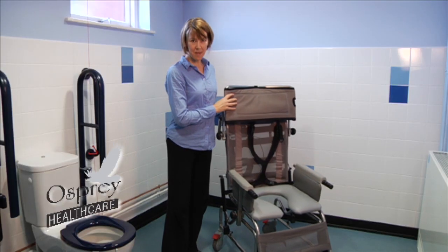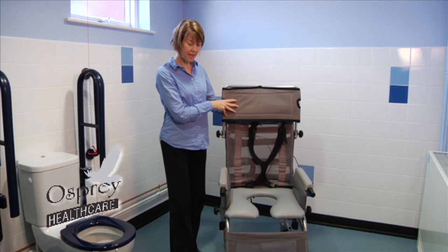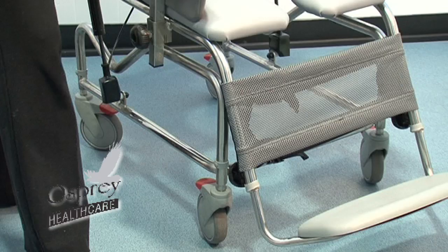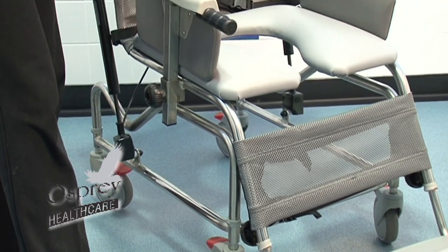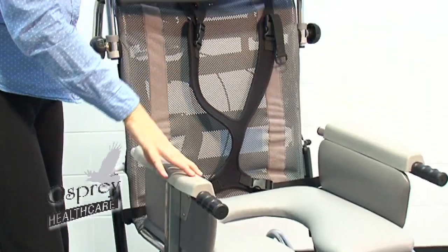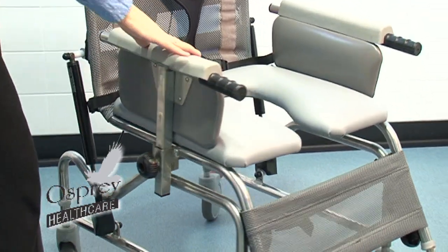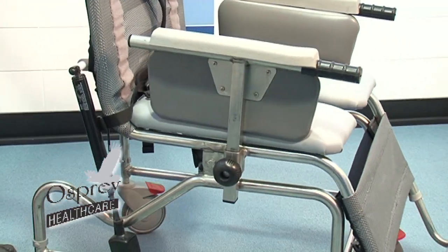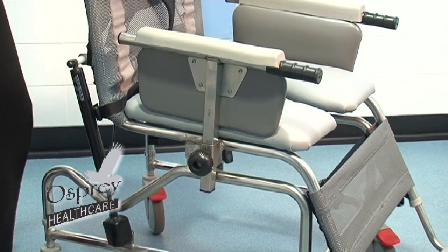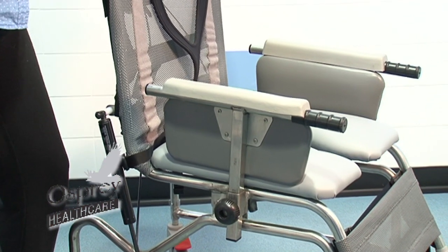We're looking here at the tilt-in-space commode shower chair. It has similarities both with the standard toilet shower chairs and also with the cradle, in that it has a mesh back but a horseshoe-shaped aperture seat. Its unique feature is that it does tilt, so for the person that can't remain upright long enough on the toilet, this could be the product you might want to try.